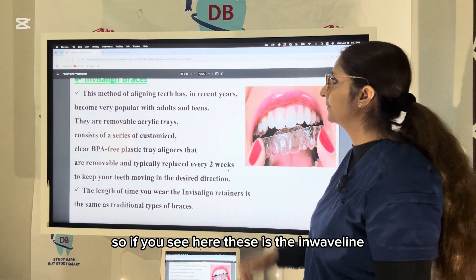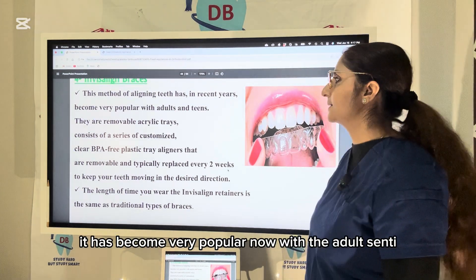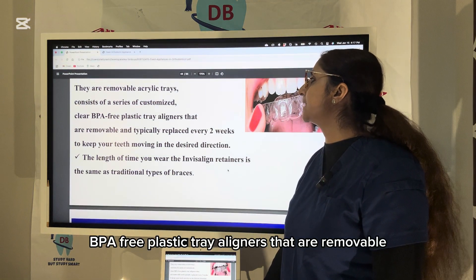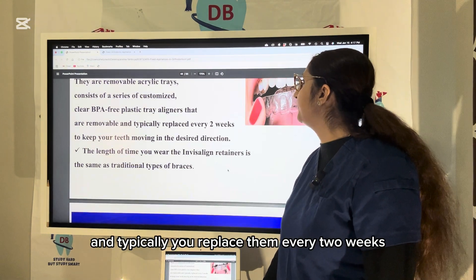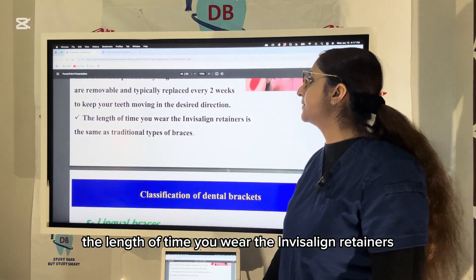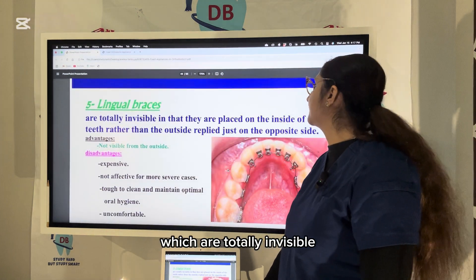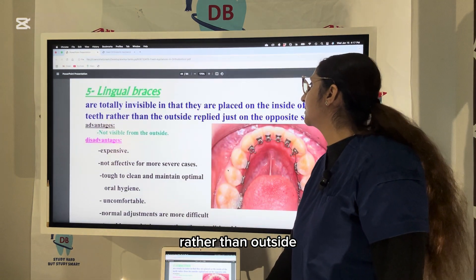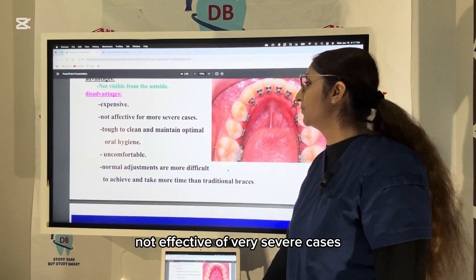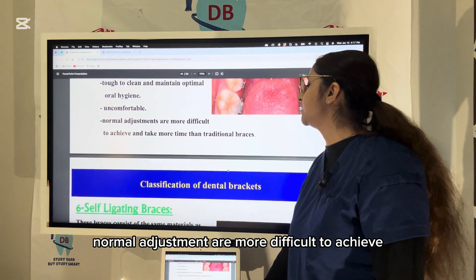Invisalign uses removable acrylic trays — a series of customized clear BPA-free plastic aligners that are replaced every two weeks to keep teeth moving in the desired direction. The total treatment duration is similar to traditional braces. Lingual braces are totally invisible as they are placed on the inside of the teeth. Disadvantages of lingual braces include high cost, ineffectiveness for severe cases, difficulty cleaning, discomfort, and more difficult adjustments.